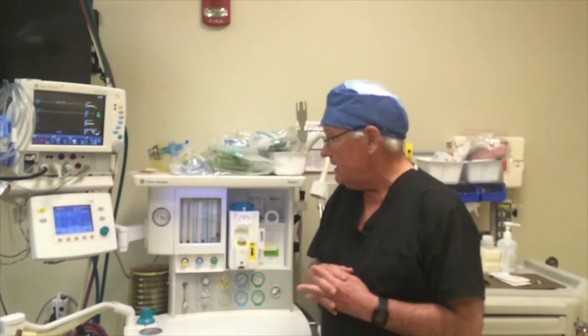Understand when we ventilate patients with COVID, we're learning that the early phases, when it's a viral pneumonia, may not require anywhere near as much PEEP, and maybe we'd be able to use larger tidal volumes for those patients. As they evolve into an ARDS situation, then we're dealing with an ARDSNet style ventilation. And that's what we're going to be talking about here in this presentation.